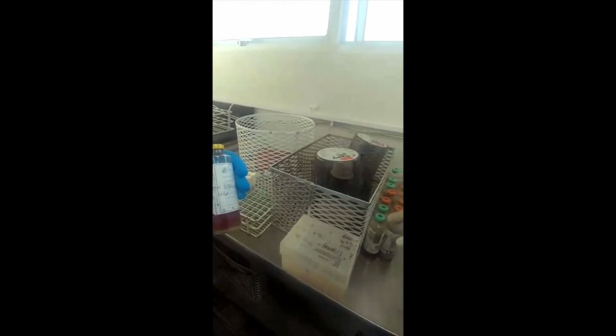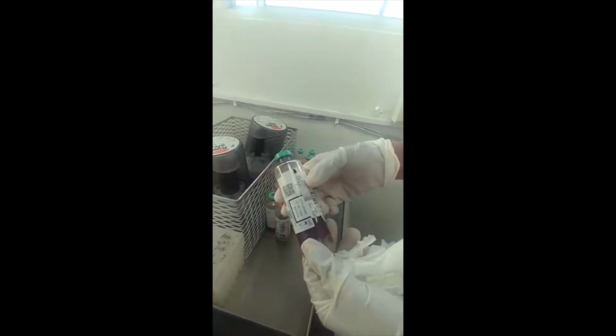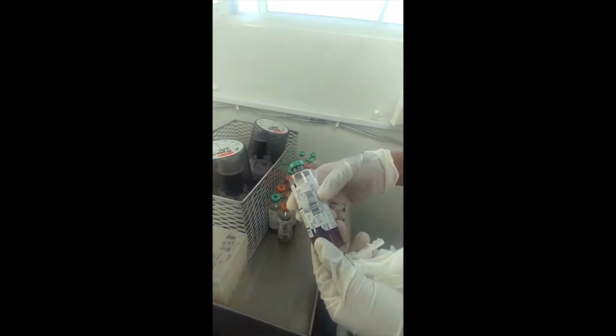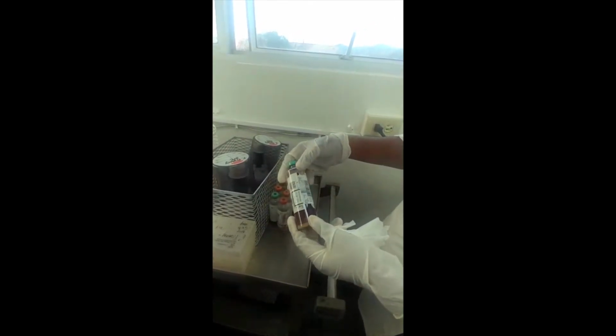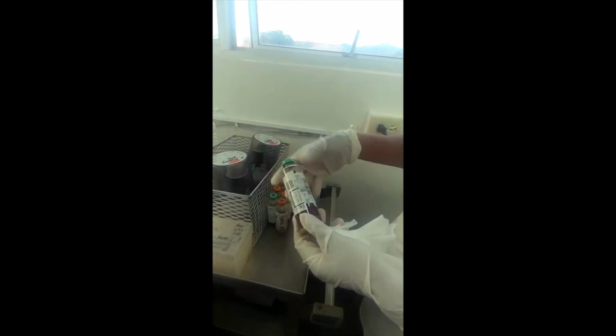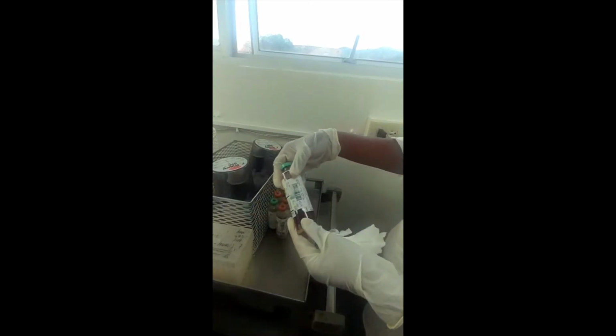And so what's the barcode on the side of the bottle for? Right. The barcode on the side allows us to scan the bottle onto the machine so that it can be specifically recognized and it's known, so that when it's time to take it off and so on, that can be done. We also generate our own barcode. So there's a barcode for the machine and there's a barcode that we generate to enter the sample onto our laboratory information system on the computer over there, which is an automated system that we use to process samples.